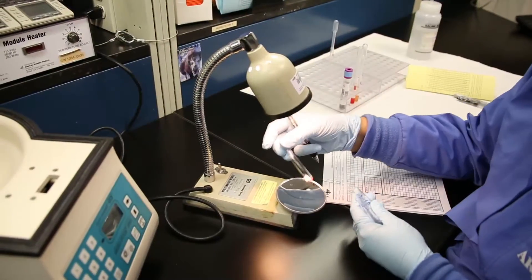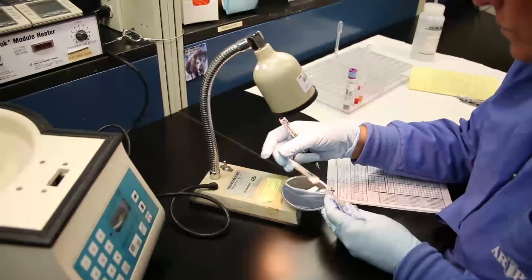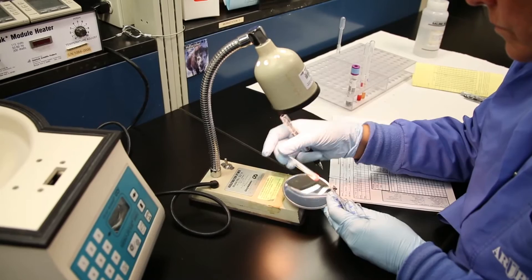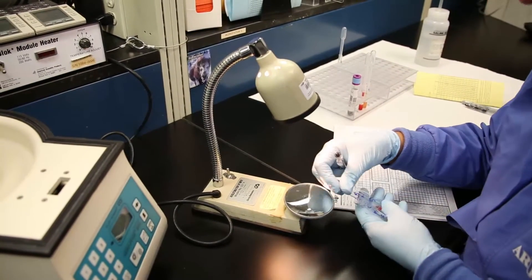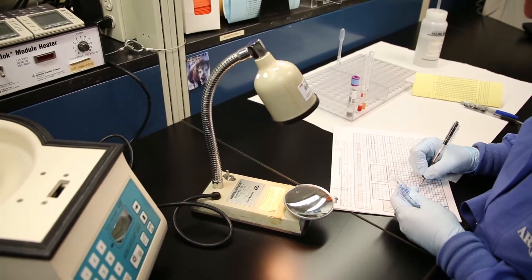Mastering proper test tube reading techniques in the blood bank laboratory is essential. For example, your ability to determine the correct strength of reactivity, identify hemolysis and mixed field reactions.